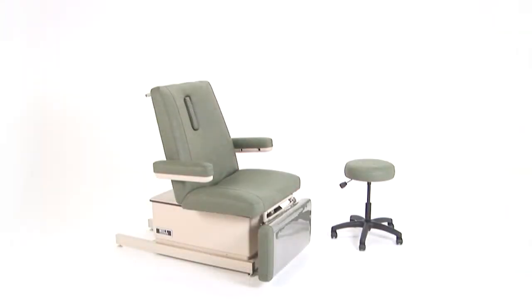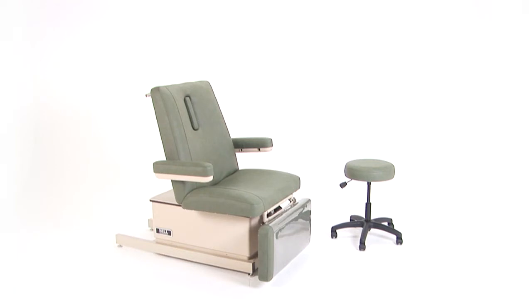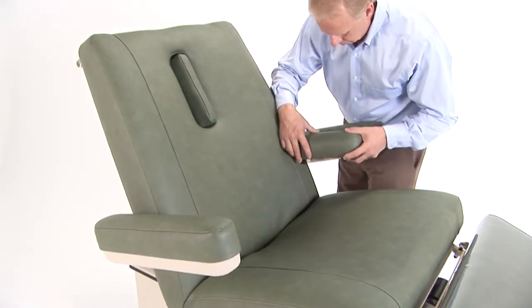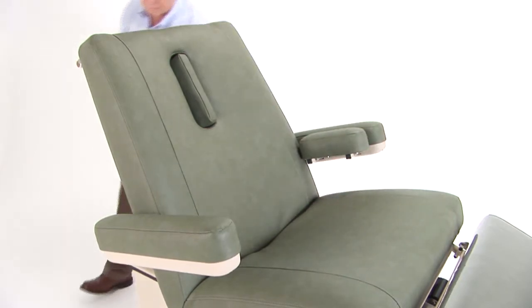In addition to these features, the 90W can be manufactured in either 26 or 30 inch widths. The model shown here is 30 inches wide. Both widths come with fold-down armrests. On the 30 inch wide model, there are additional plug-in armrests that extend inward to accommodate thinner patients. These extensions are easily installed.